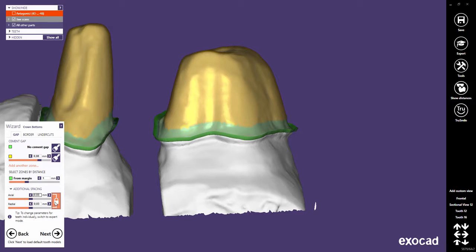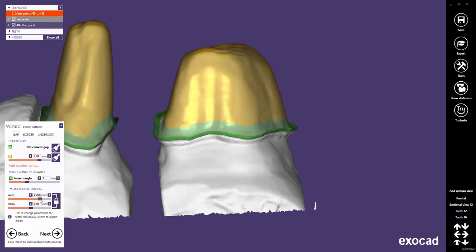Nonetheless, you can unlock the sliders and set an individual parameter for each.